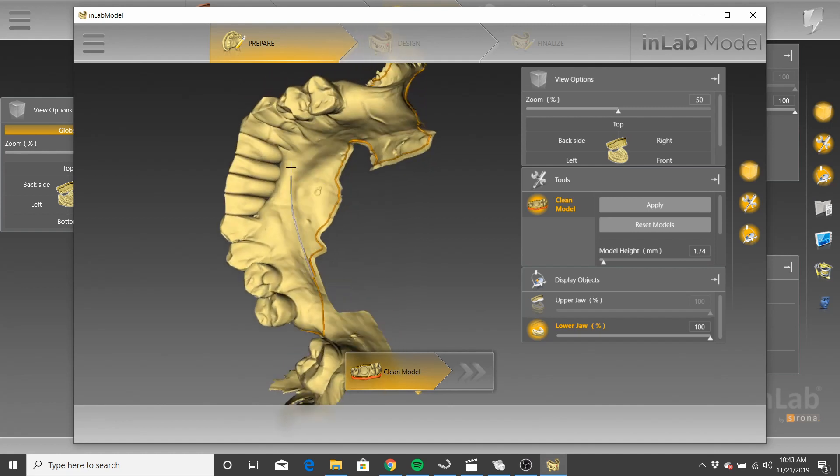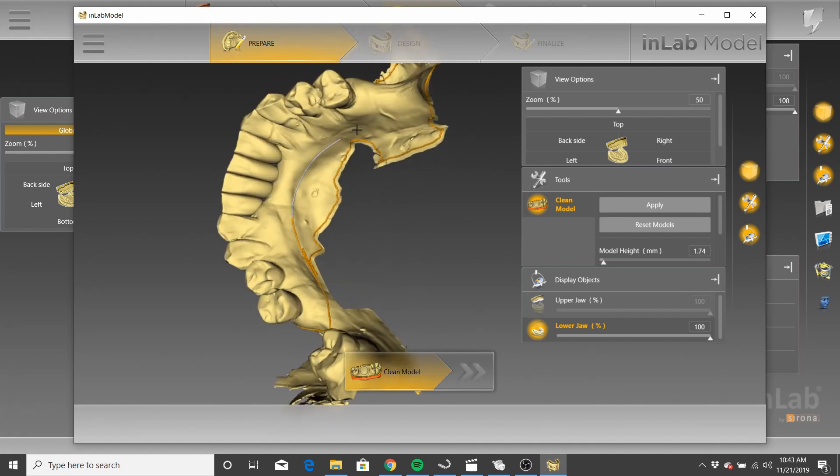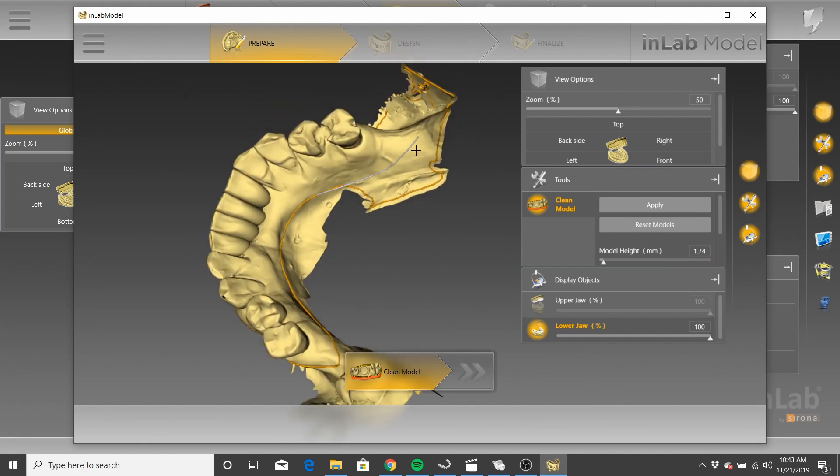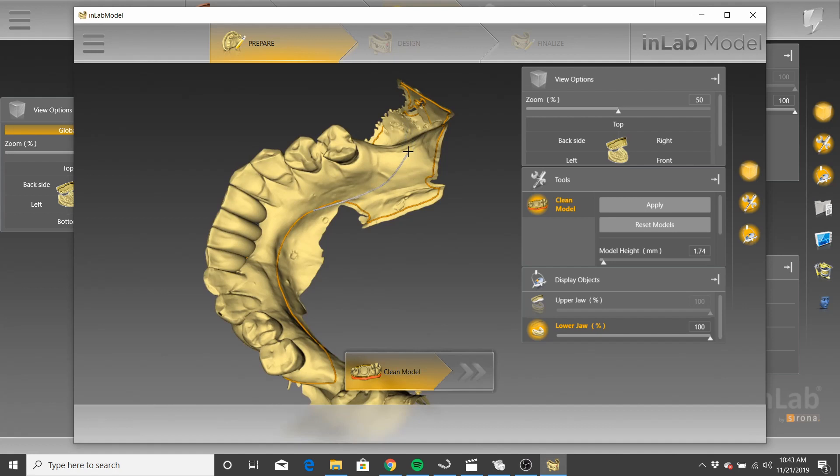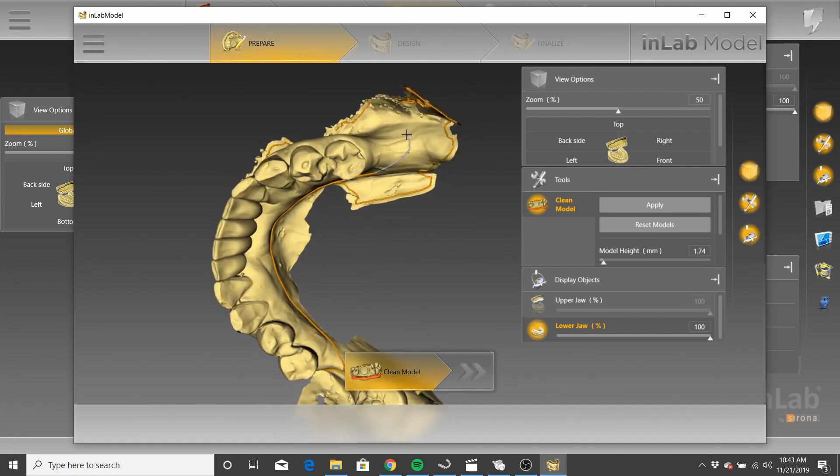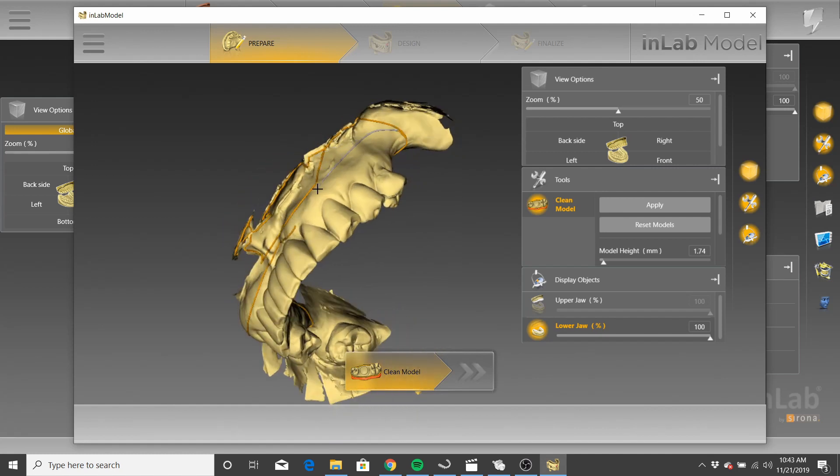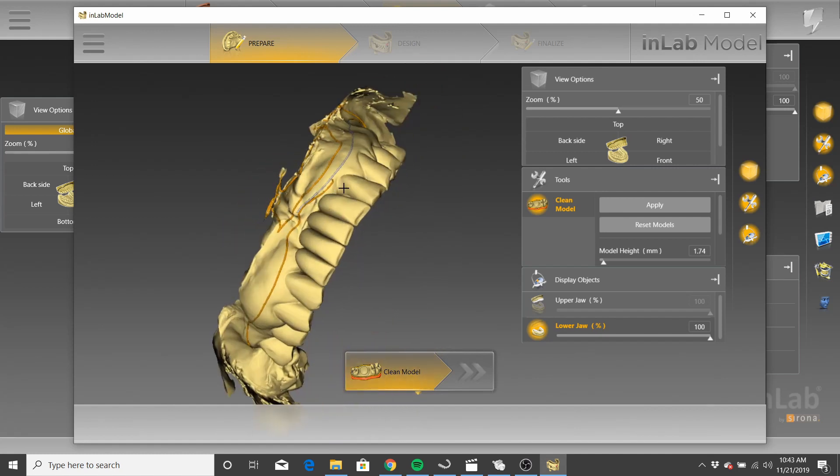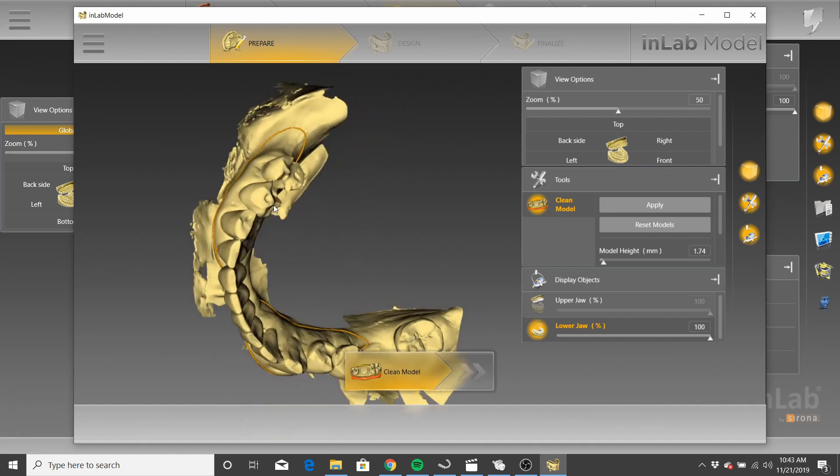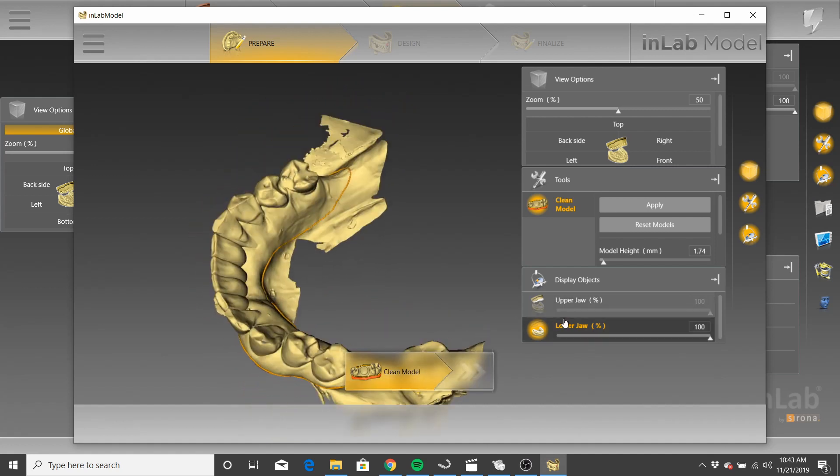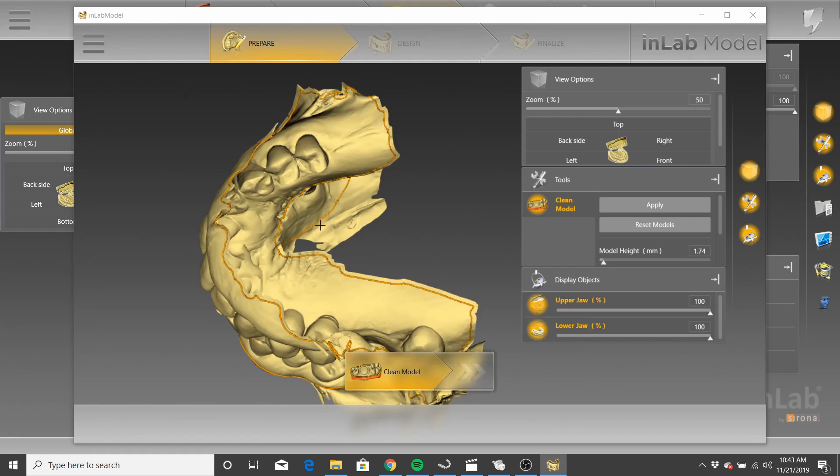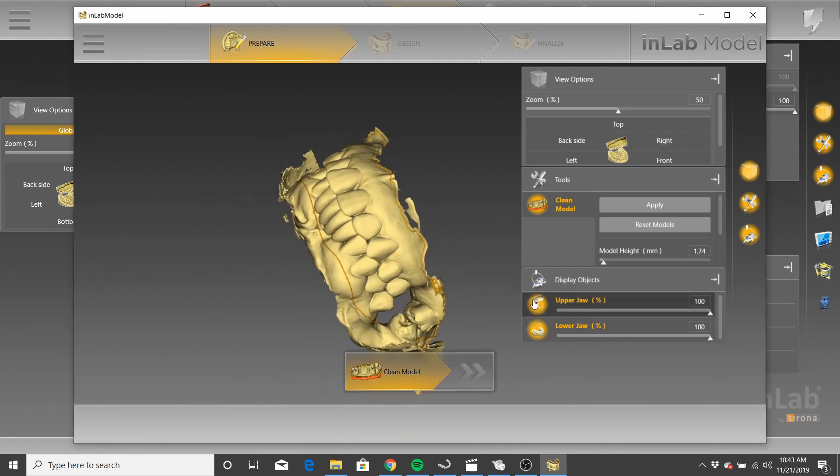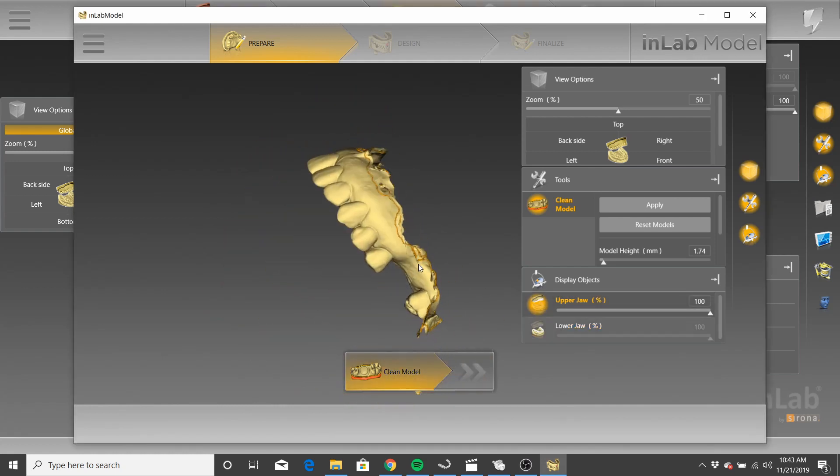Who has experienced this? Now, I know what it is. What's happening is the portion that you want selected isn't as large as the portion that... I don't even want to explain it. But that's just so annoying when this happens. Okay, we'll just go with that. It's not the prettiest job in the world, but that's what we'll go with. We'll do the upper two. I would just say disregard it. Well, we're just going to disregard it.